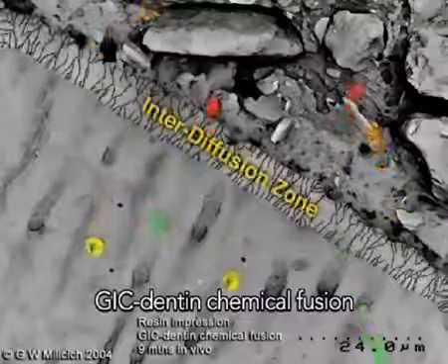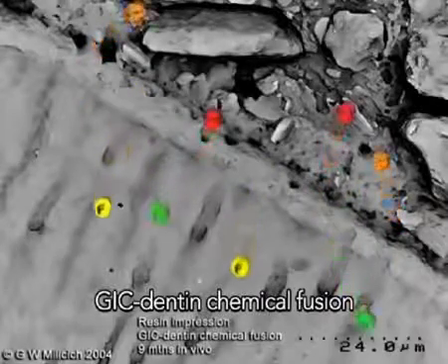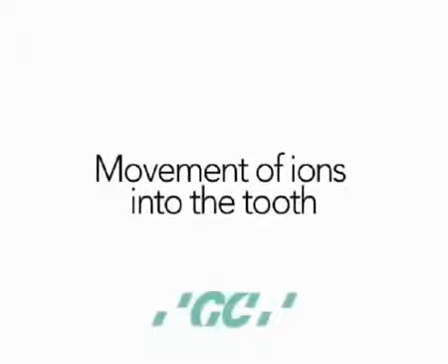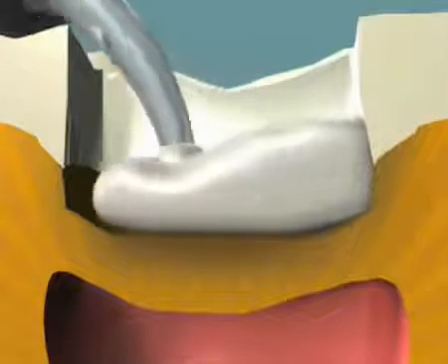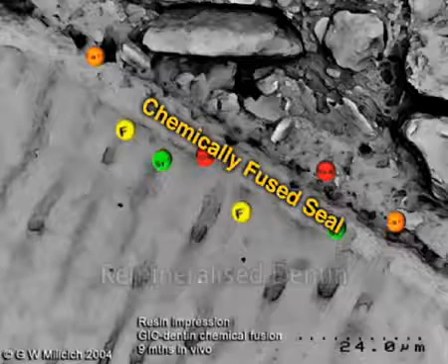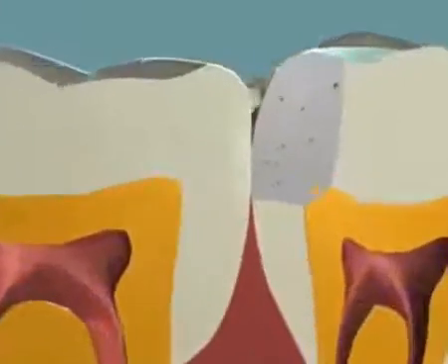Calcium and phosphate ions from the polyacid-treated dentin and enamel, and strontium and fluoride ions from the unset glass ionomer, intermix and precipitate, forming an interface called the interdiffusion zone. This zone is stronger and more acid-resistant than either the glass ionomer or the tooth. The combination of the interdiffusion zone and the chemical bonding provides the basis for a strong, stable adhesive interface, and creates a bacteria-proof seal for the cavity, best described as a chemically fused seal. The initial penetration of strontium and fluoride ions into the tooth helps remineralize and harden any demineralized dentin, which is covered by glass ionomer cement.